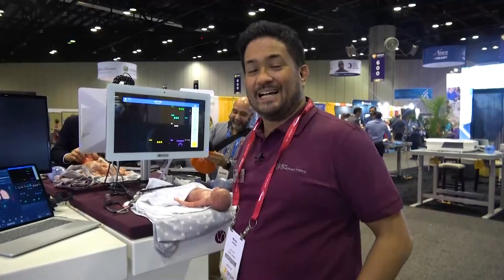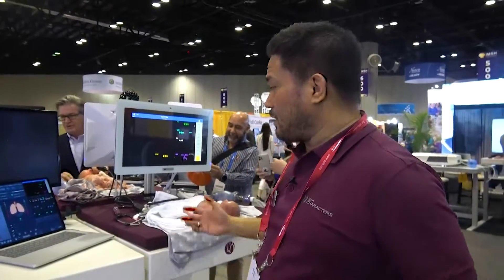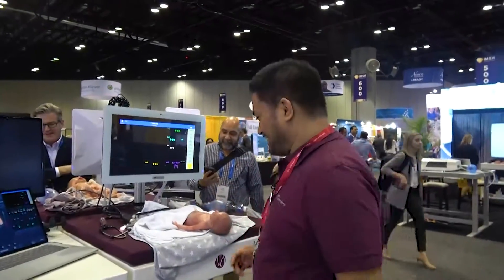My name is Martin Jesse. I work for the company SimCharacters. I'm a neonatologist in Frankfurt, Germany, and I'll show you Paul as a simulator.